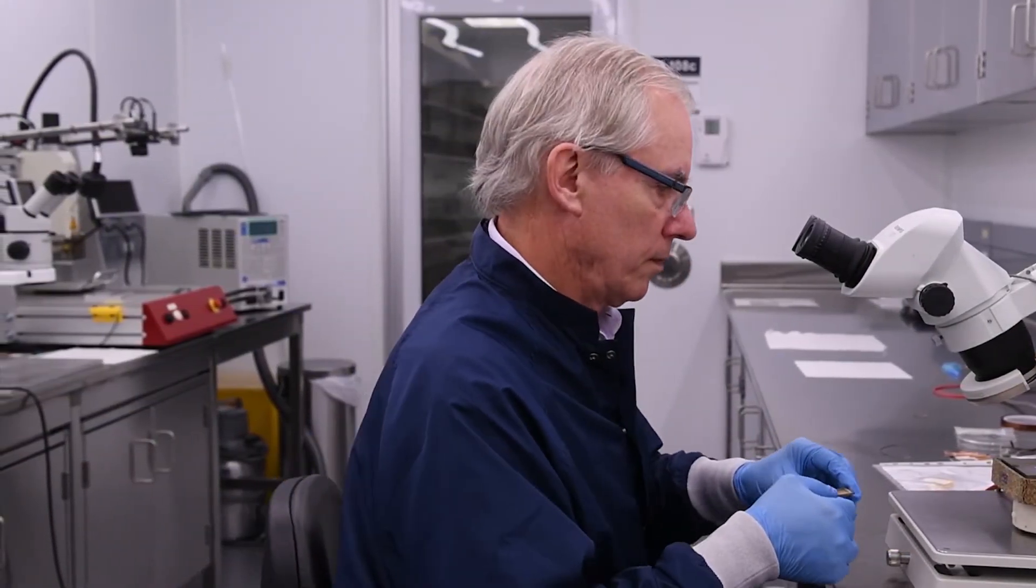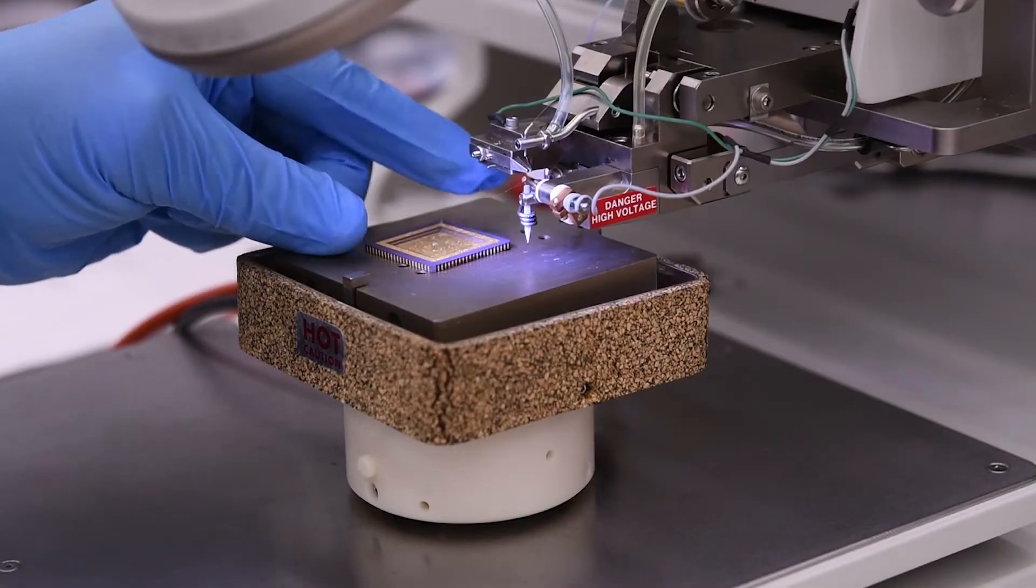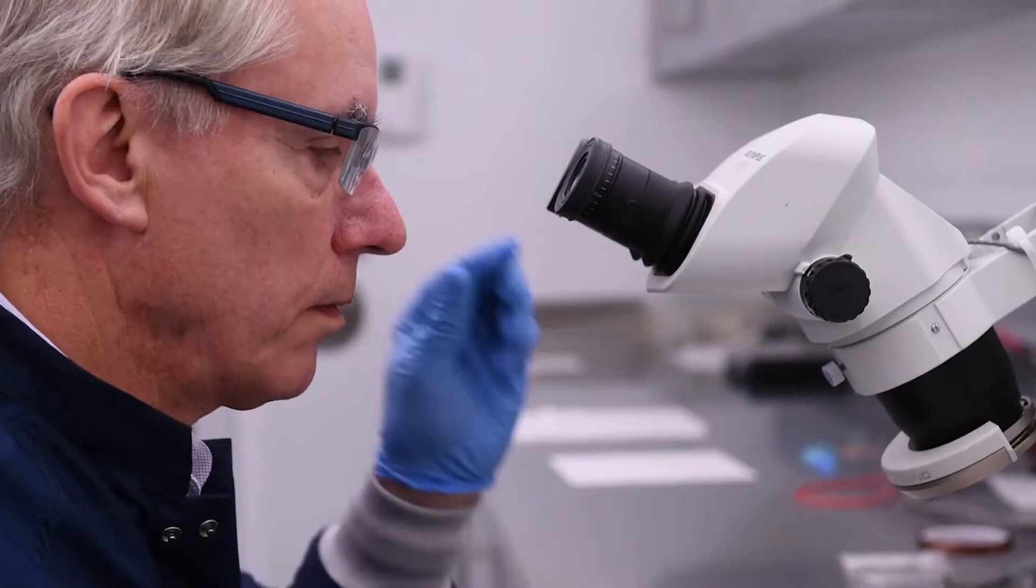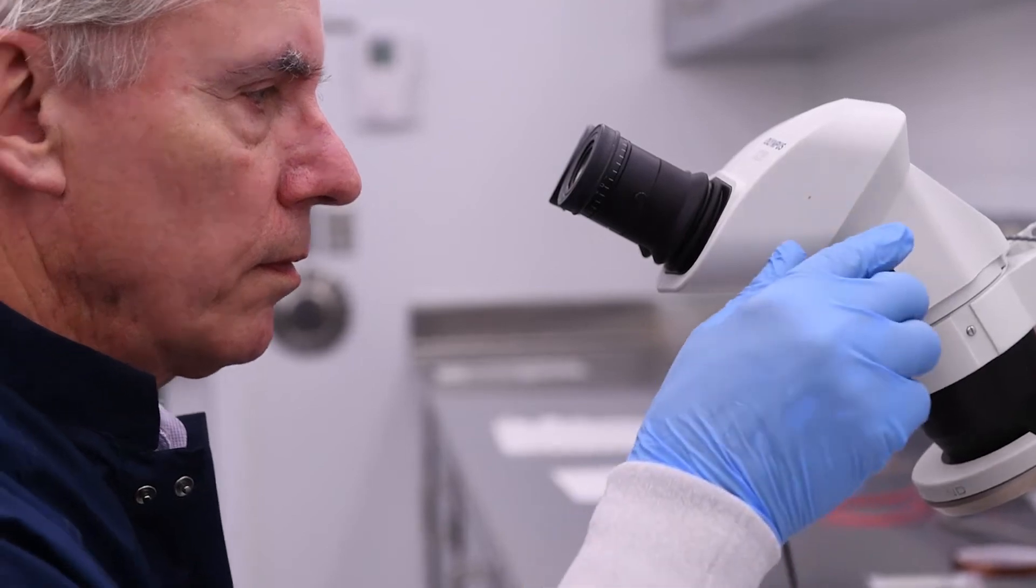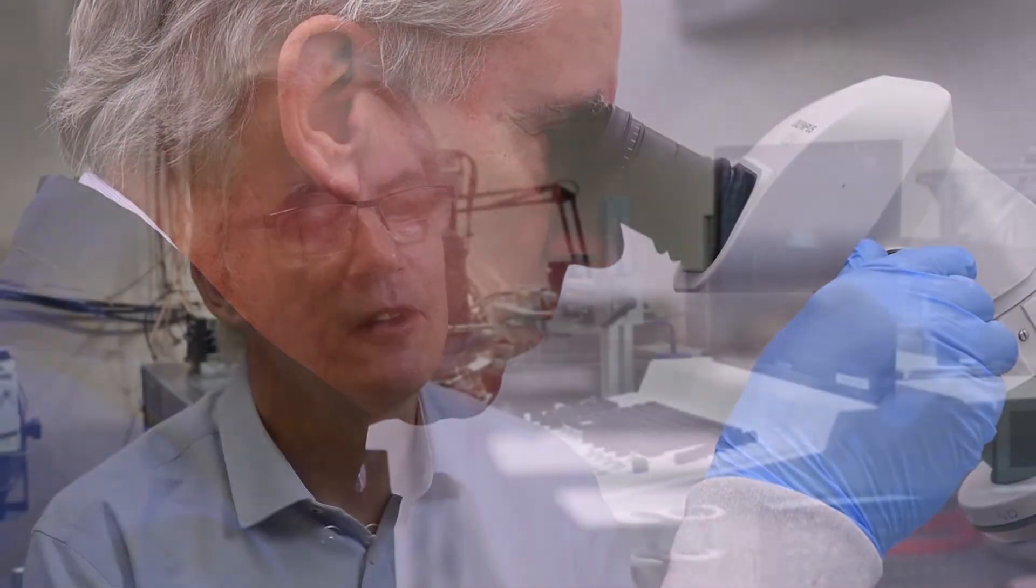The imaging tools themselves are based on technologies that were developed first here at Sunnybrook, and they involved very intricate technical developments of transducers.